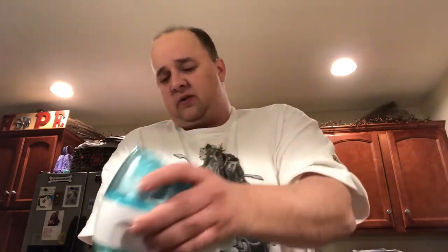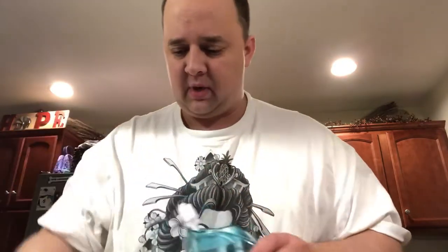Just a little twist like that — and there you can see the dirty water. Honestly, it's not that bad. You see some particles and everything like that, but pretty much not that bad. Dump that into your sink, then you want to clean it. The top section comes off — actually, do the nose nostrils first: pull it out like that and you'll get some residual. You have your O-rings here — these actually come out. Pull those out and clean all of that. Pop up the top and there you have your empty cartridge. I wash this — I run water over the top just because it is a salt water solution. That gives you almost like a Q-tip to clean out the unit itself. Run the others through a nice soapy bath. Do not put in the dishwasher and away you go.